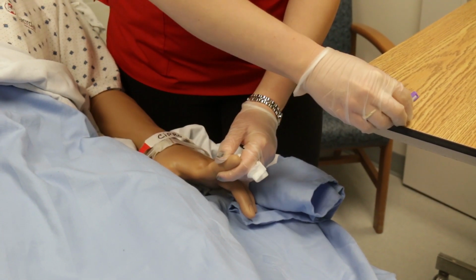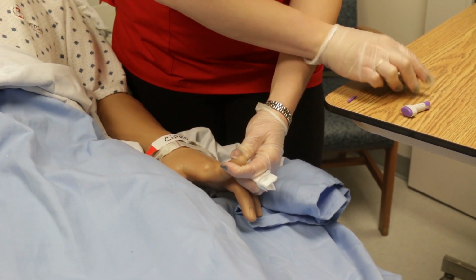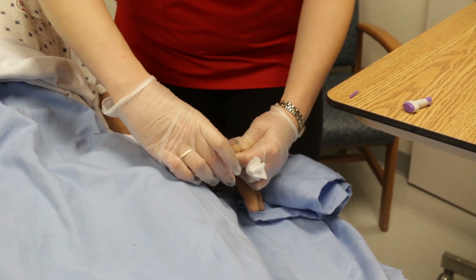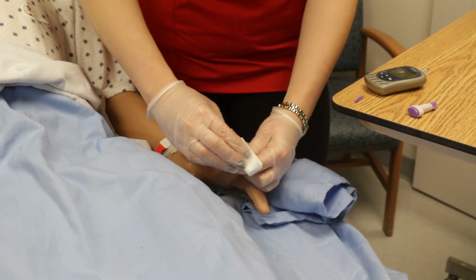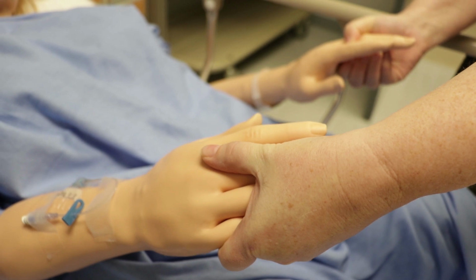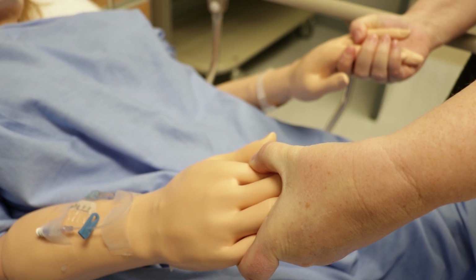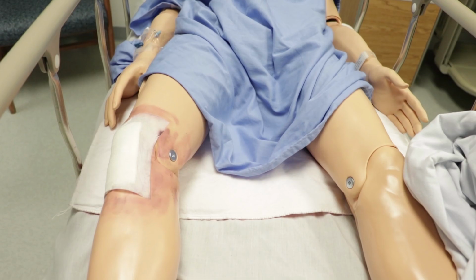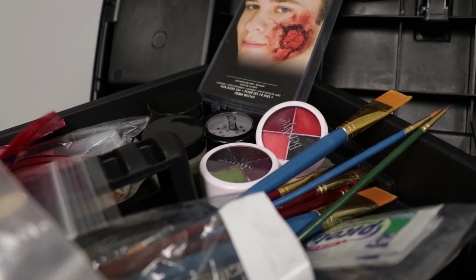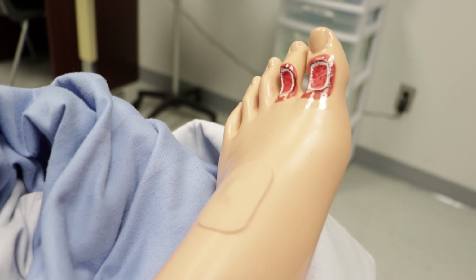Note that you cannot assess the extremities for sensation, movement, or cap refill. However, if you ask your patient about this assessment, either the patient or the speaker in the control room will verbalize the feelings to you. Can you feel your fingers? Can you move your toes? Mannequin will respond yes. Students need to make the statements, and a response will be provided for you. Color and swelling can be applied via makeup called moulage. Moulage will also indicate redness, bruising, abrasions, or bleeding.